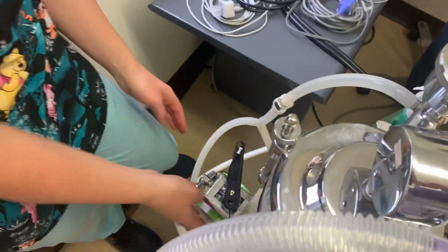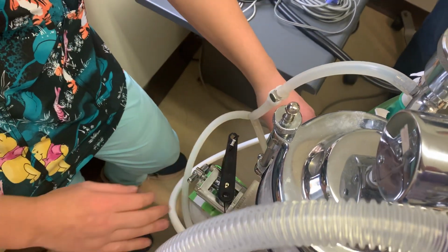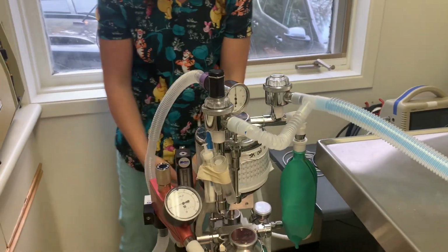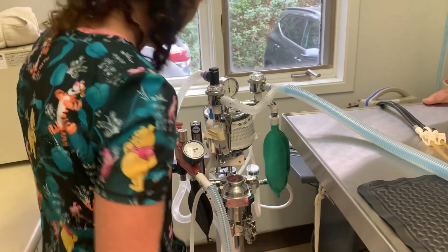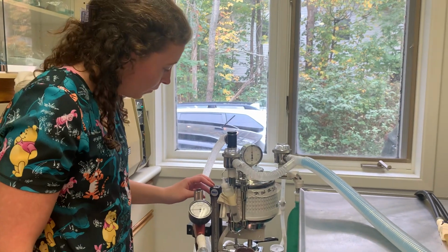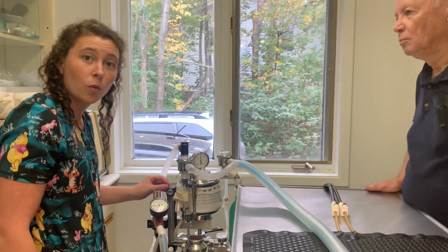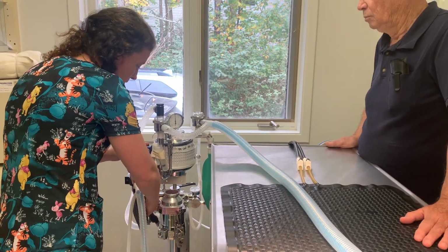The oxygen source is right here, and it's going to run up and around here, and it's going to go through the oxygen pressure meter. So we've got that here, and it's going to come around the hose here. Then come up the front to our oxygen pressure meter, which is right here, or oxygen flow meter. And this is going to allow us to decide how much oxygen we want the patient to receive based on turning this valve, this knob, up and down.